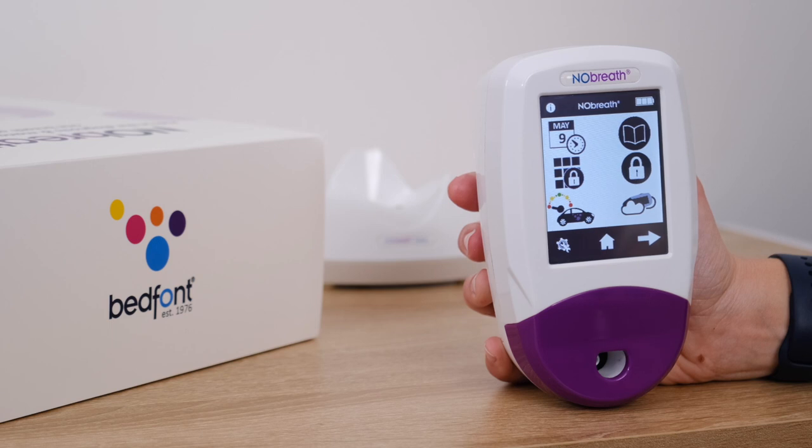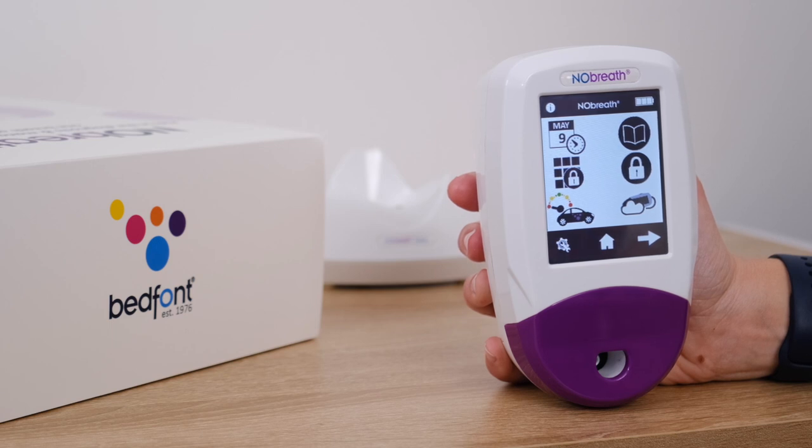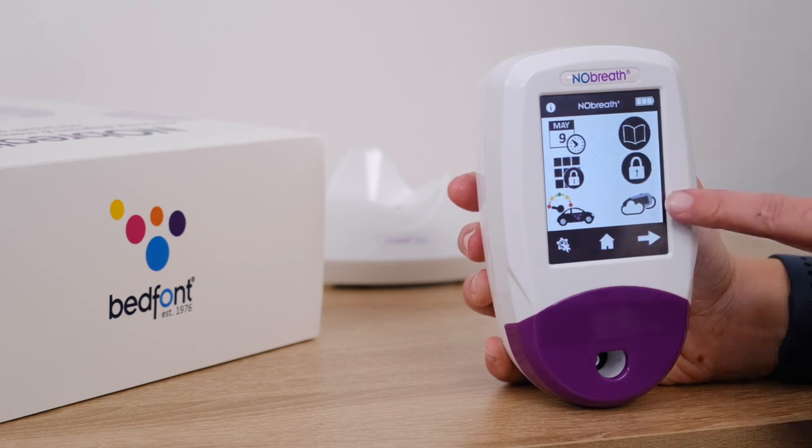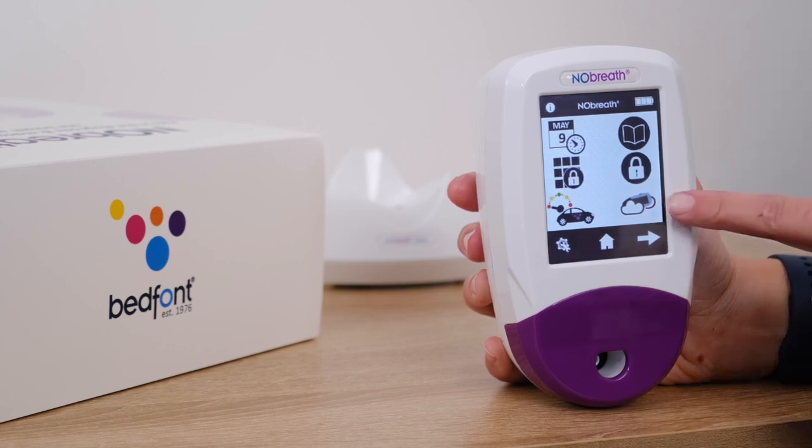The next menu option is the ambient test mode. This will be covered in chapter 6.